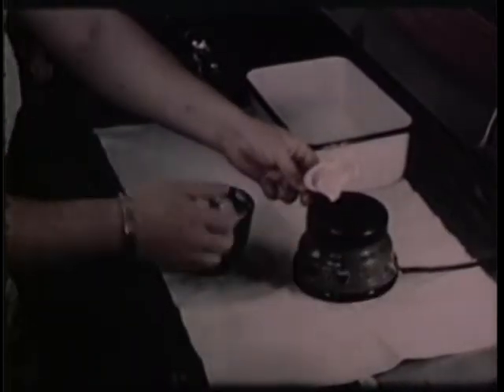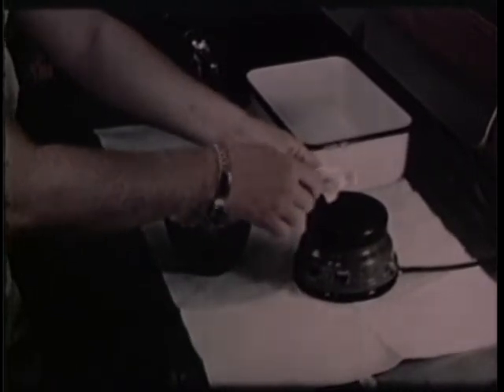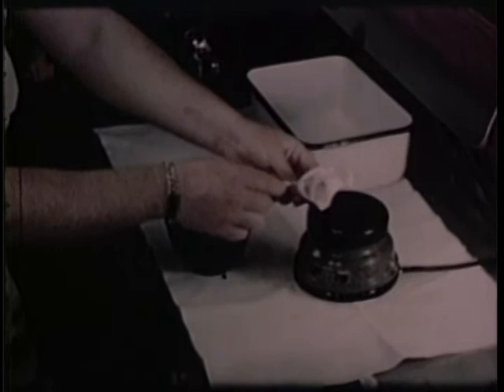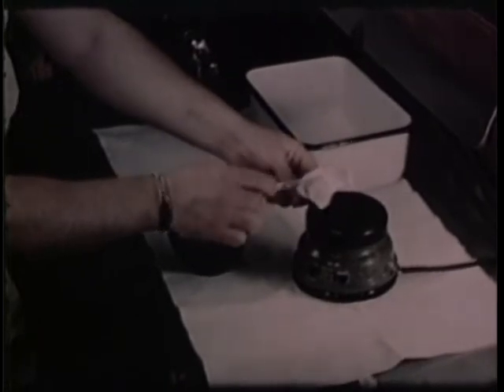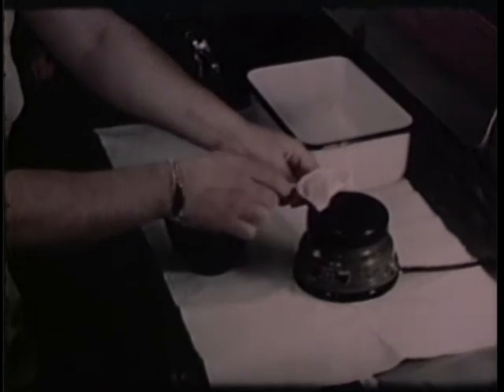The impressions are poured with artificial stone, using a vibrator or suction apparatus to assure uniform density of the models. This means greater hardness and density.